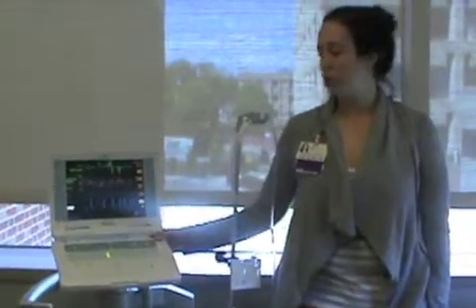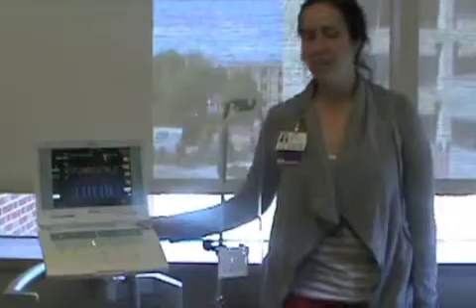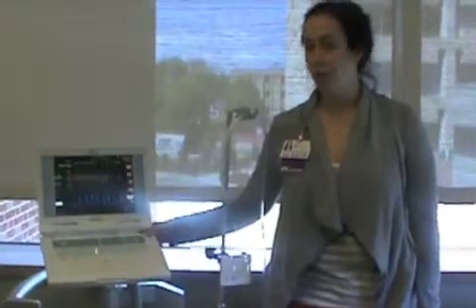Hi, I'm Kristen with Clinical Education and we are going to talk about an Irregular Pressure Trigger Alarm. Sometimes when the Irregular Pressure Trigger Alarm comes up on your balloon, it doesn't make an audible alarm — it will only make a visual alarm here on the screen, because it's not an alarm that you necessarily need to rush to correct.